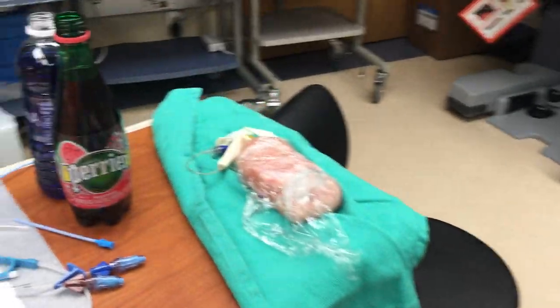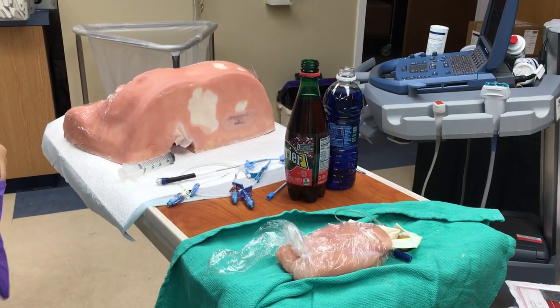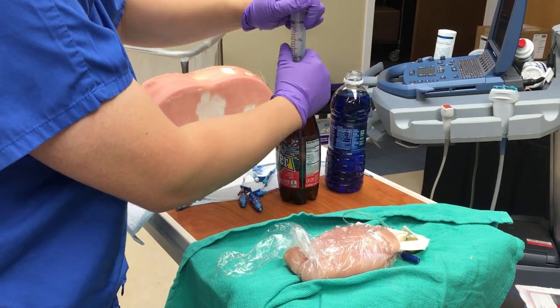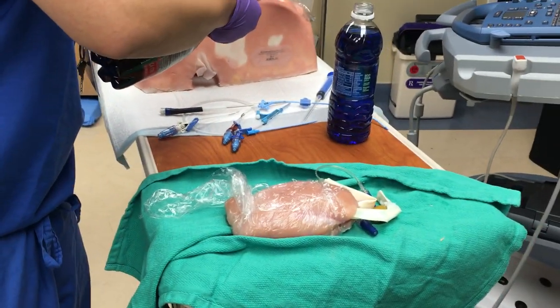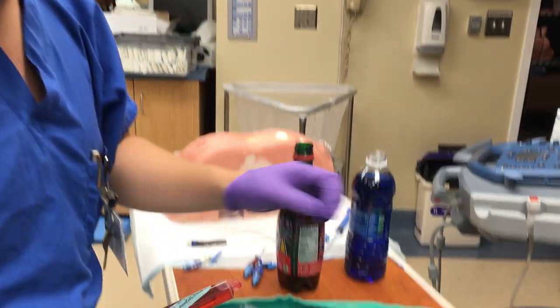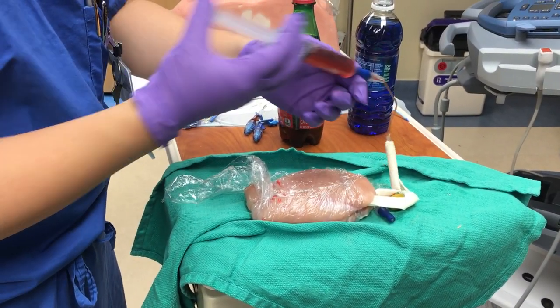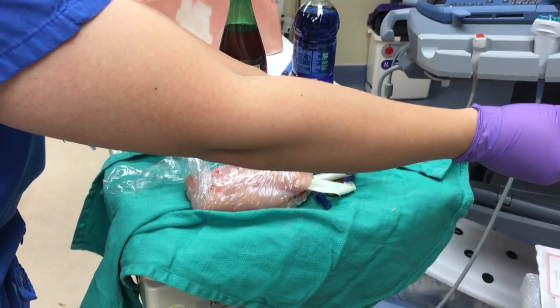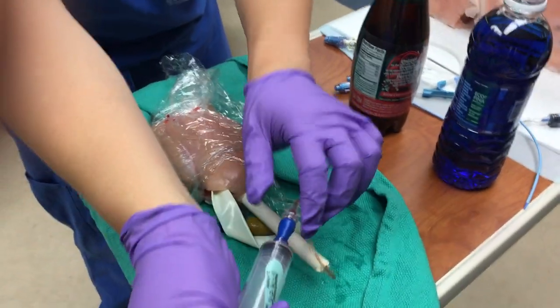Let me just get a new pair of gloves. To add the fluid in the tubing, you have about a 20cc syringe. Why 20? Because it's about 20cc to fill the tubing — maybe about 15. We want to fill the artery more because you want it to be higher pressure. The goal is that under ultrasound, you can have the vein be compressible versus the artery be less compressible. You can fill all 20cc and feel the stiffness of the tubing to make sure you have adequate pressure.